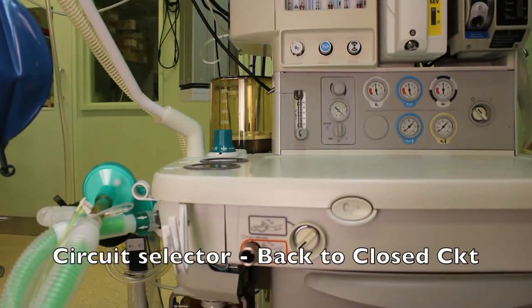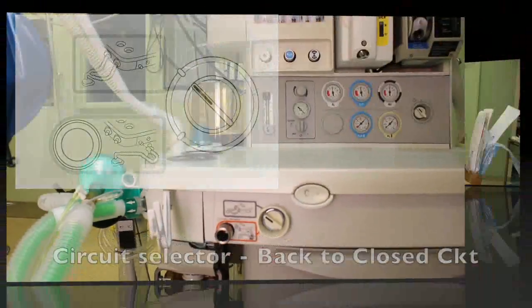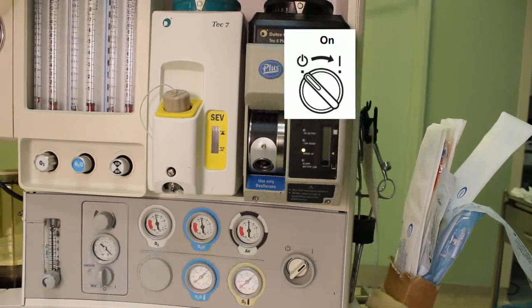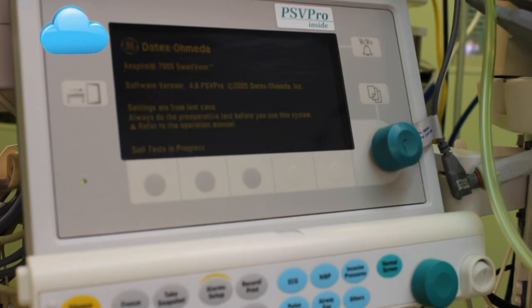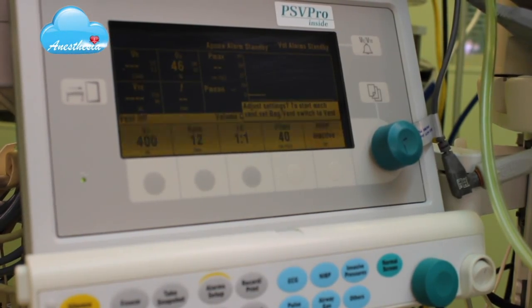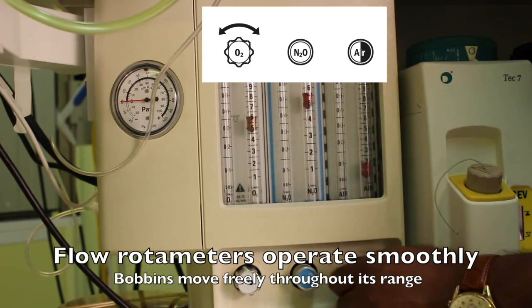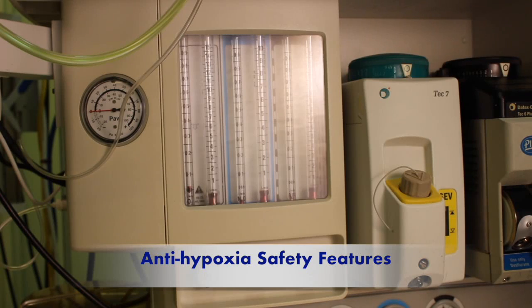After the leak test, see that the circuit selector is switched back to closed circuit mode. At this stage you can turn the machine on. Check that flow rotameters operate smoothly and bobbins move freely throughout their full range.